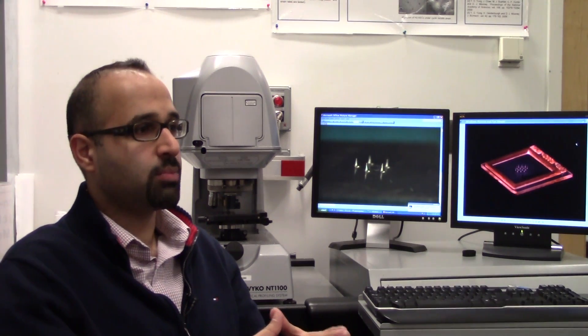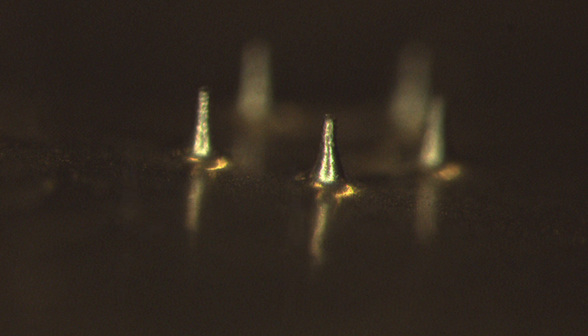So then we decided that for some applications we might need longer needles. And we decided to make the needles from metals. But it's essentially the same physics.